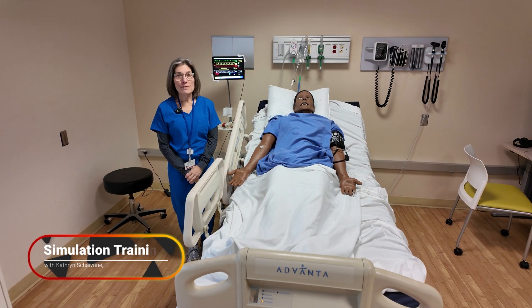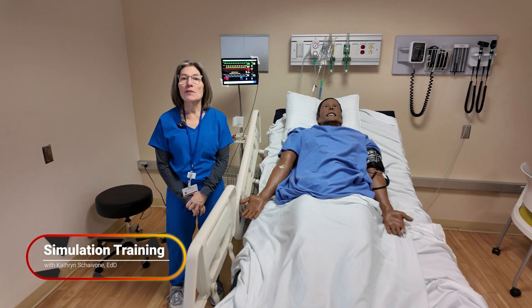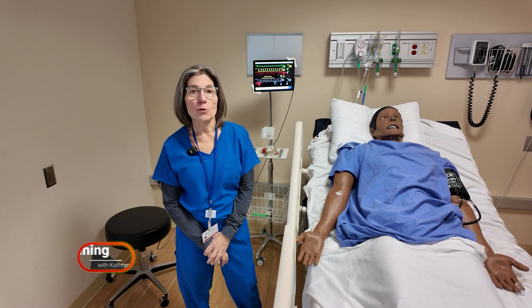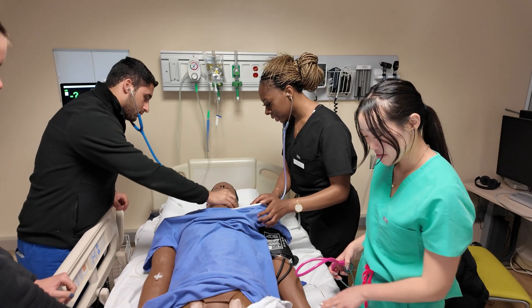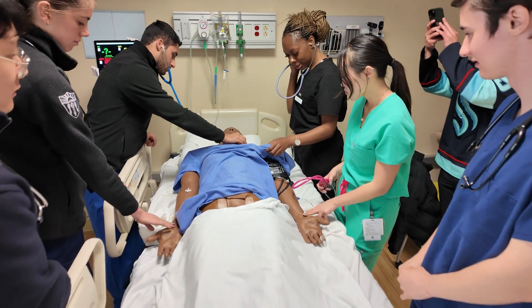We're using our high fidelity mannequin simulators today in order to instruct our students in a variety of crisis interventions with a hospitalized patient.